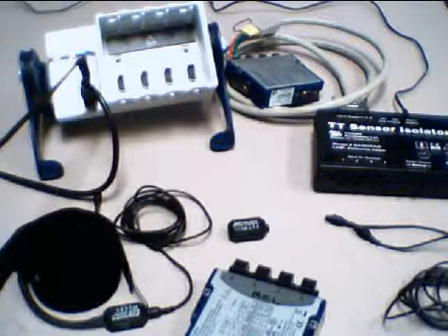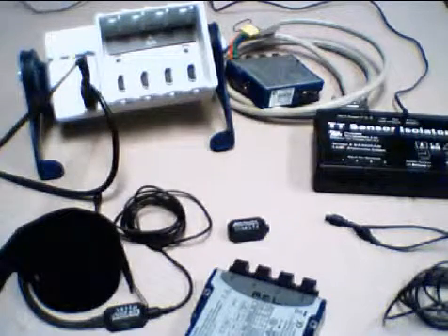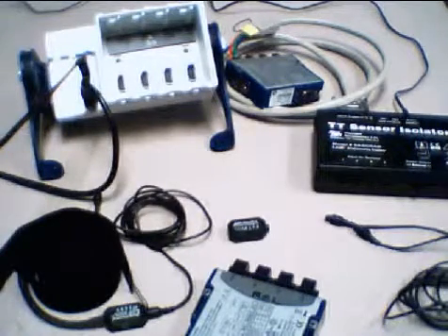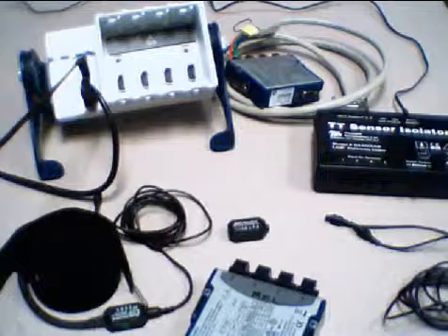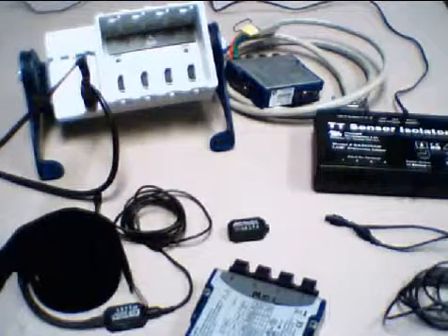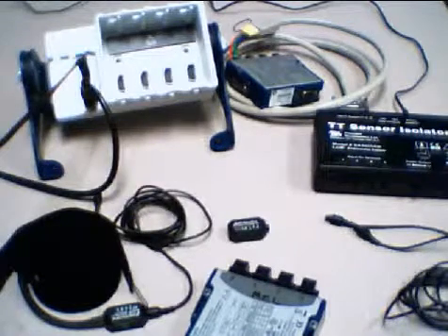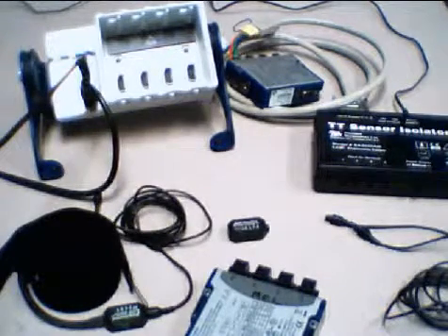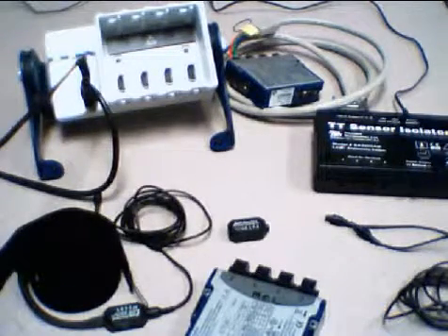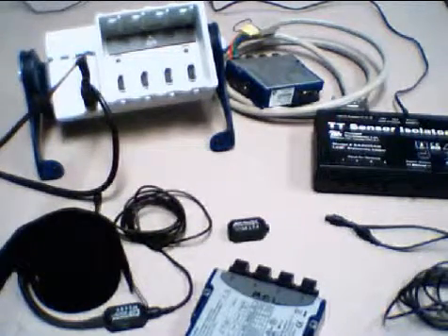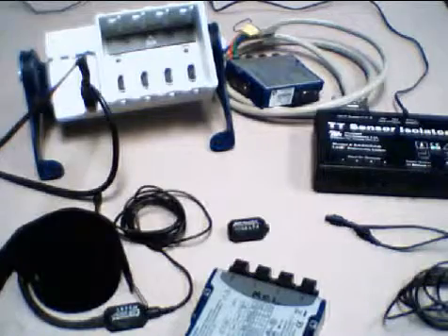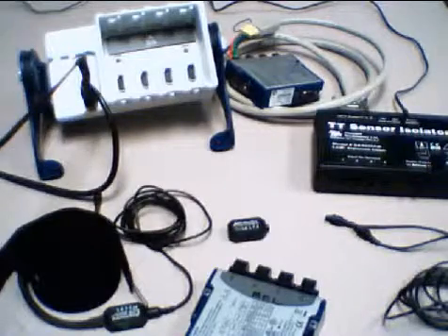The first part of the system I want to introduce is the actual sensors, the transducers that take the physical signal of interest and convert it into a measurable voltage. For the demonstration I'm going to be using two sensors from Thought Technologies.